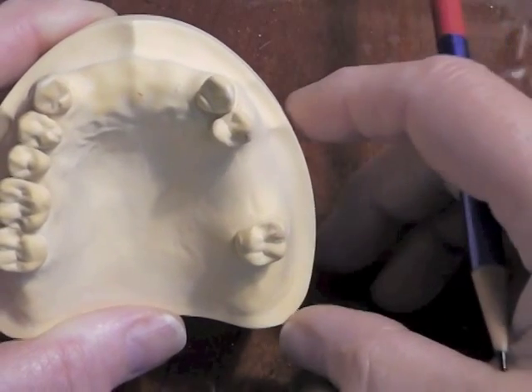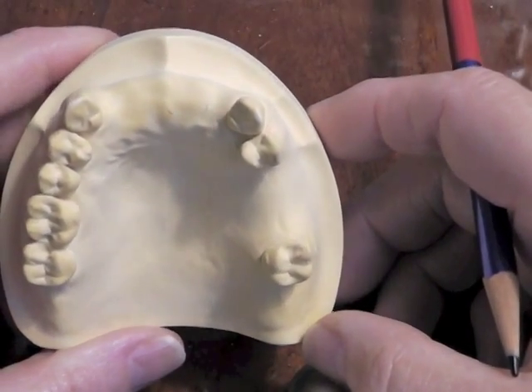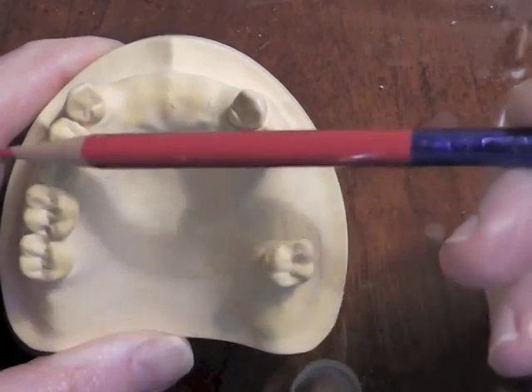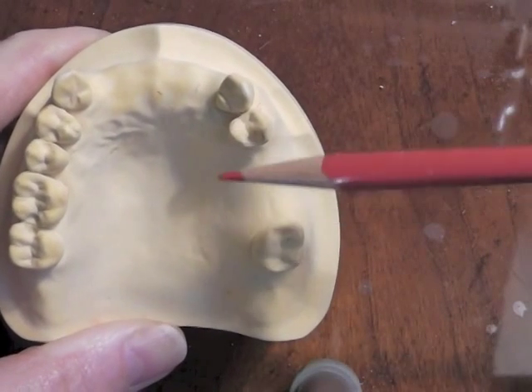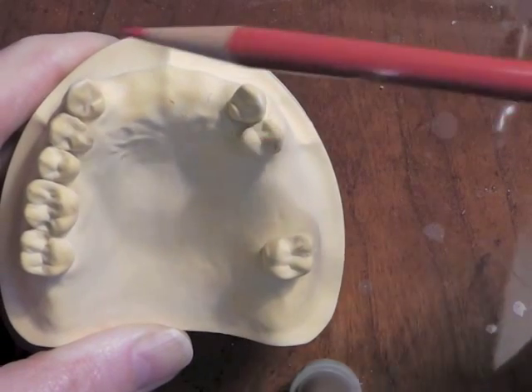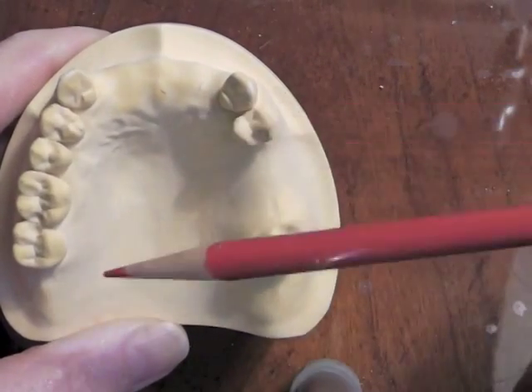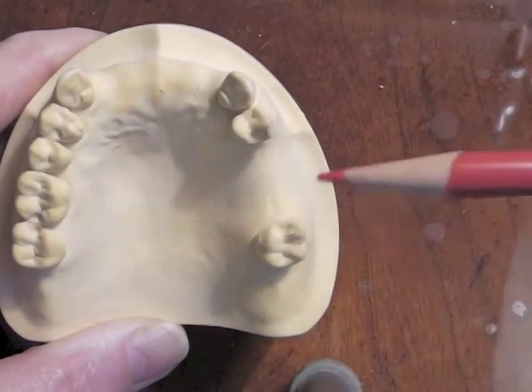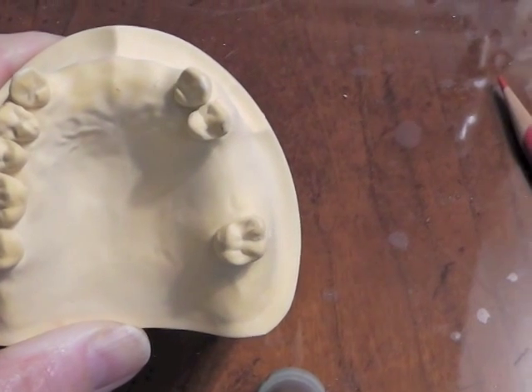So let's think about this. We've followed some of the rules for our Kennedy Class III. We've looked at preventing rotation around these areas. Now we really will have no rotation on a tooth-supported partial denture, but you have to think about the forces and where the best placement of the clasp assemblies is for a Kennedy Class III. So let's look and see whether we have the right design on our surveyor.